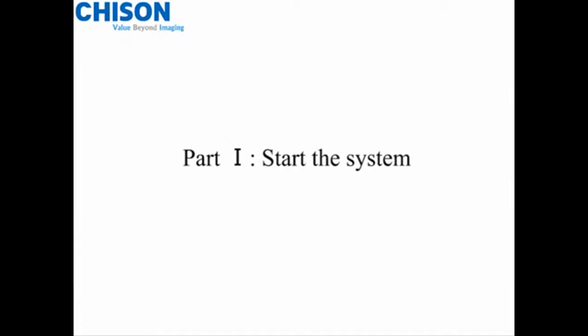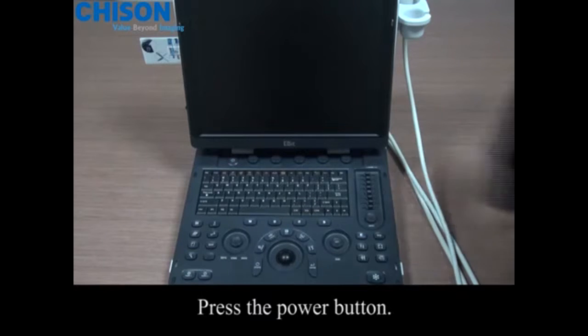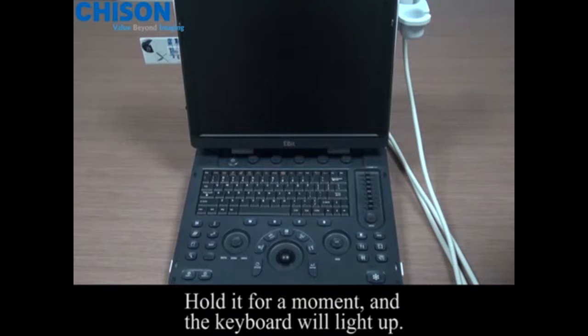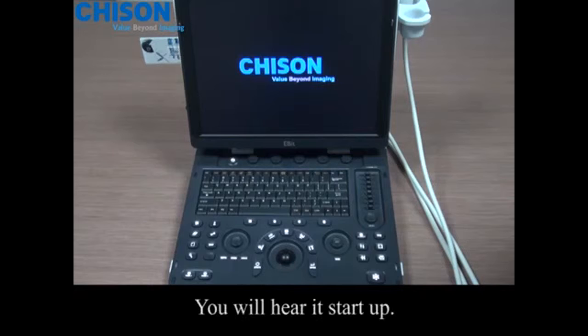Part 1. Start the system. Press the power button. Hold it for a moment and the keyboard will light up. You will hear it start up.